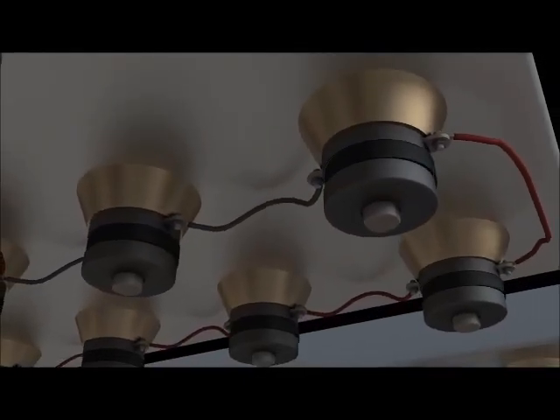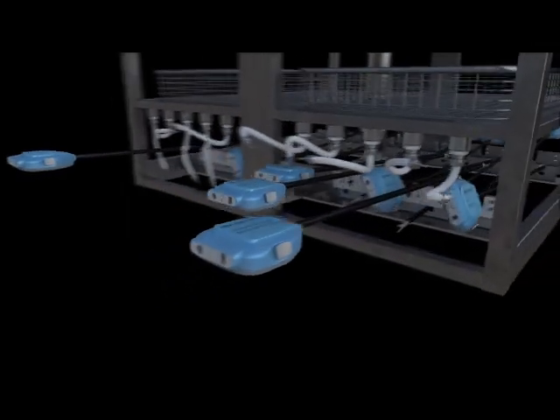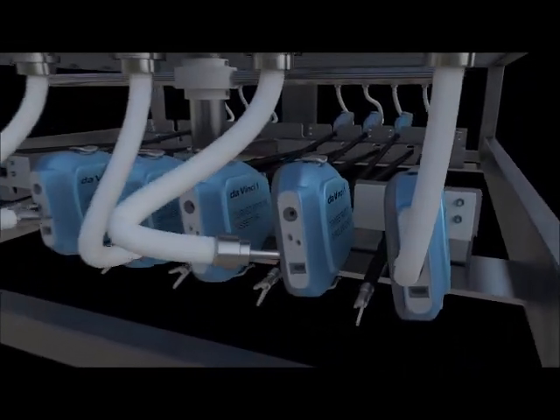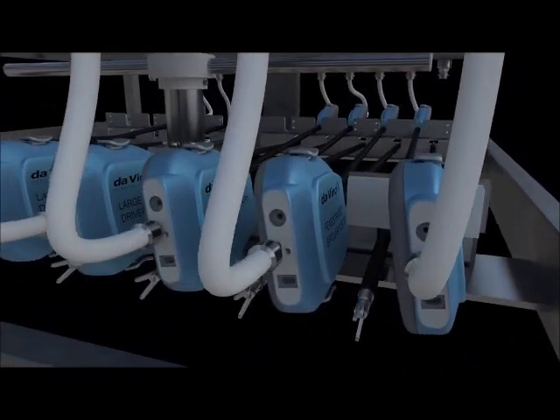The system handles either 20 DaVinci endo wrists or up to 48 standard instruments, resulting in the satisfaction of any cleaning needs you may have.